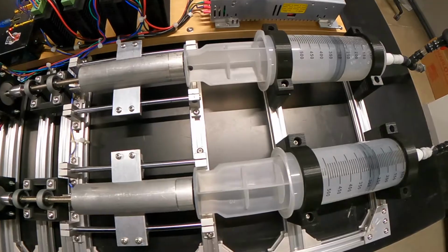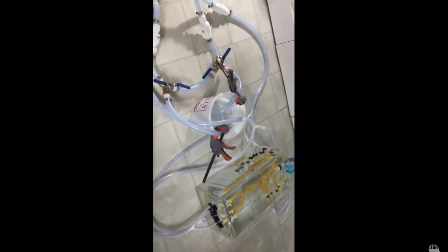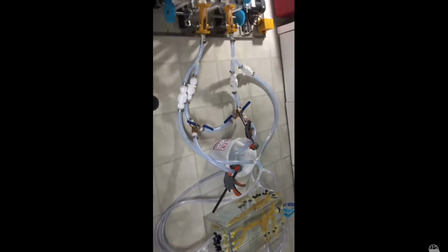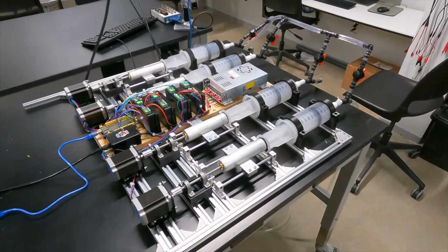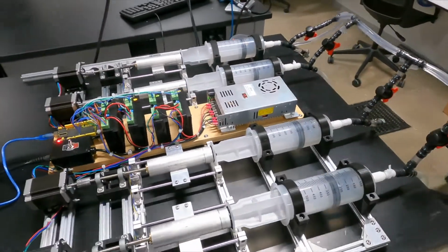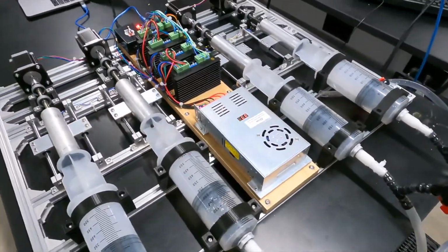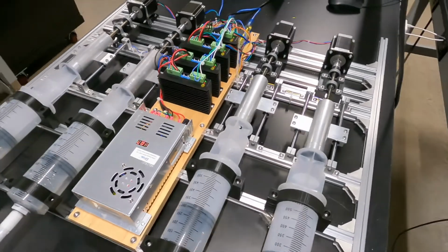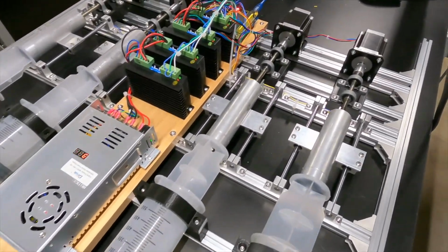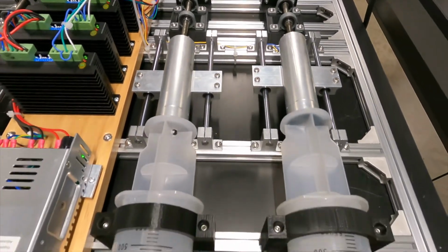Comparable devices on the market only allow for speed control and require manually changing the volume and synchrony of the phantom heart's chambers. With our design, not only can volume and offset be changed through a computer application, but the parameters can be set for each chamber independently. The heart rate is also variable on the computer program. The Phantom Cardiac Pump and Control Unit is much more cost-effective than existing options, coming in at around 10% of the cost of similar devices.